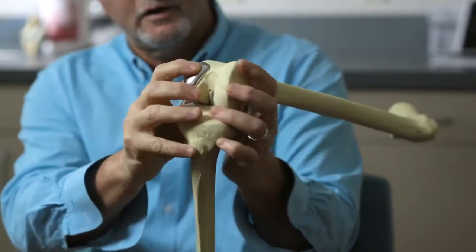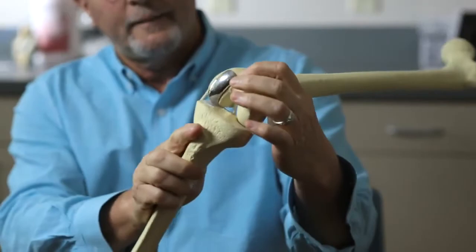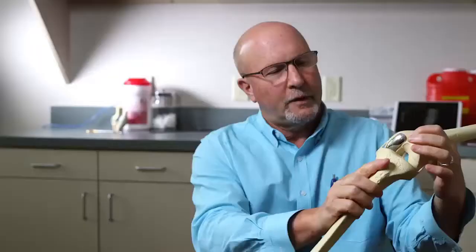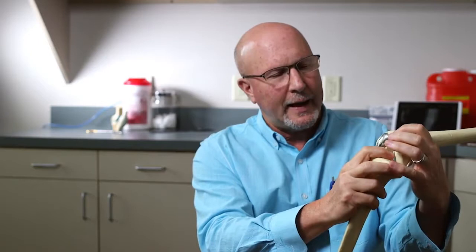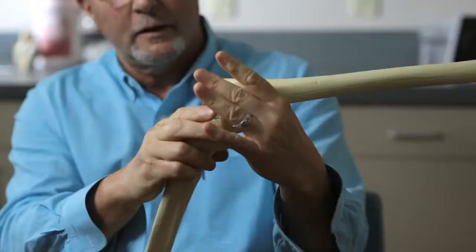We remove very little bone so that the bad side of the knee is now resurfaced, the ligaments in the middle of the knee are still intact, and all the other two-thirds of the knee is still functioning perfectly natural with good cartilage.